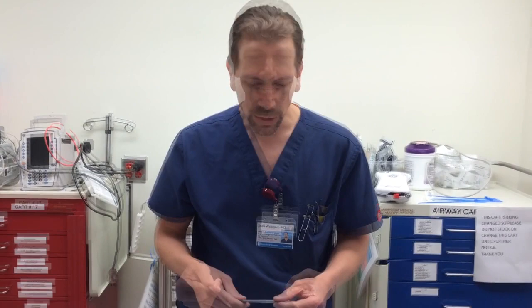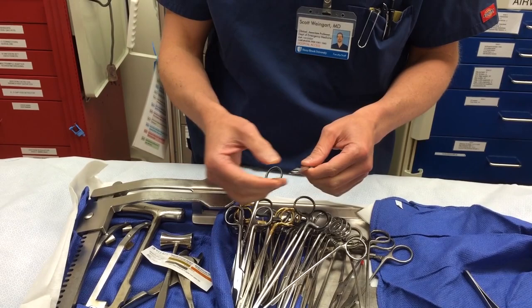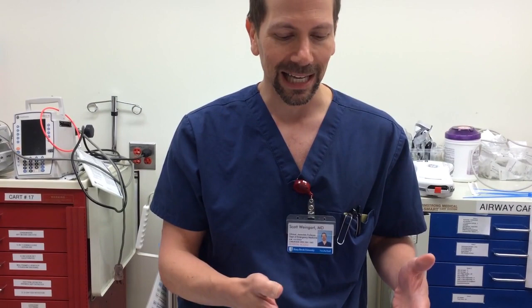When you actually need them, they're never there. The way they handle it at Shock Trauma is they put blades on two scalpels — big blades — left in the little peel-away packaging, then sterilized. At Elmhurst we discovered disposable scalpels that could be autoclaved, so you could put two in your kit and autoclave the tray. Just having a handle is not a good option. You need a scalpel with a blade already on, either taped to the outside or in the kit.